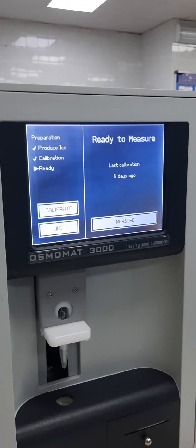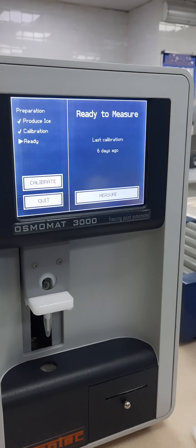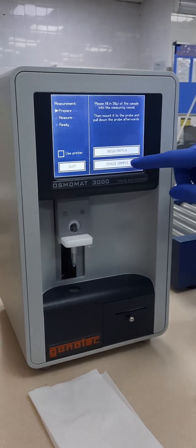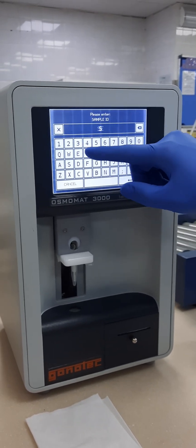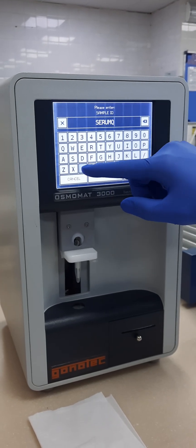So every week we are doing this. I will show you tomorrow. This one I will measure — this is a single batch I am using. I will make this a serum, QC2, level 2.